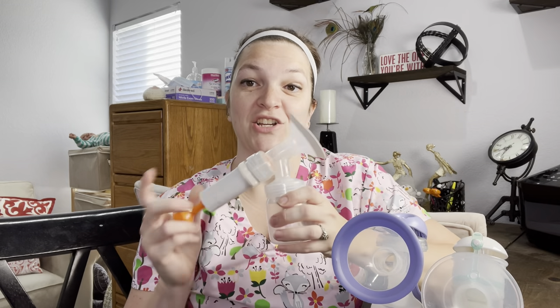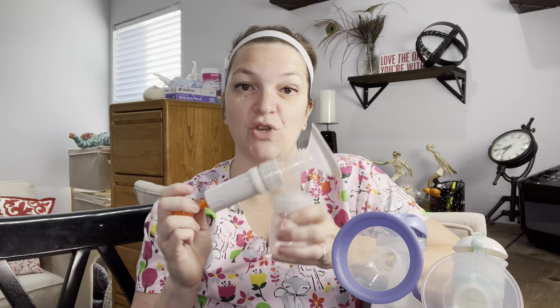I'm not talking about a manual pump like the Hakka. The Hakka is going to suction on and use suction and a vacuum to draw out milk. The Hakka may or may not work for everybody — for some people this can pull off milk, especially in the middle of the night if you're full and baby's sleeping longer. This is not a hand pump; this is a manual or silicone pump. When I say hand pump, I mean an actual hand pump where you are using your hands to pump your milk.